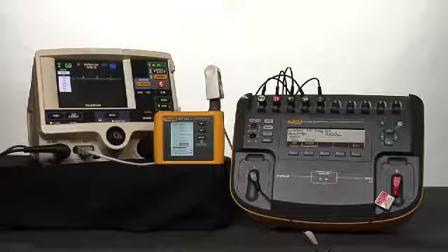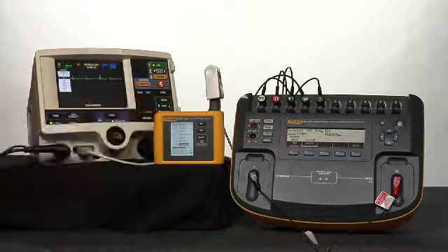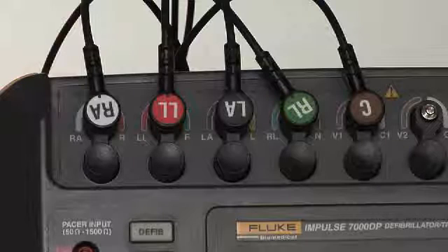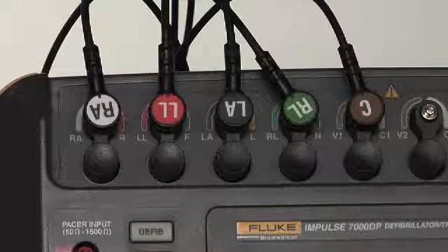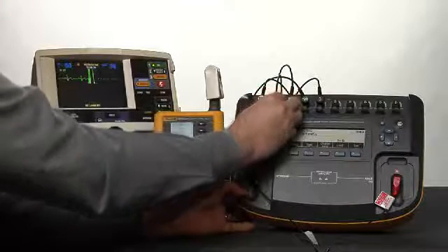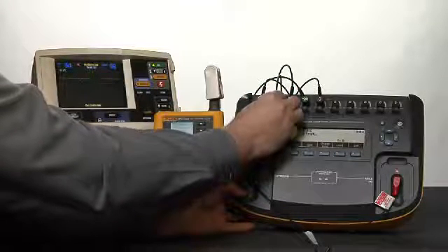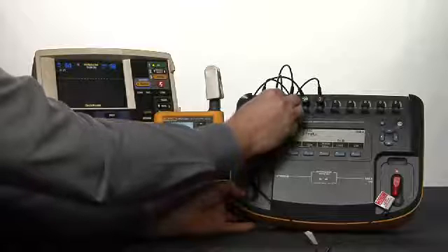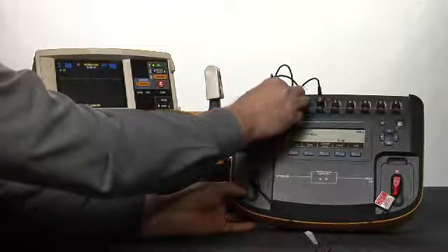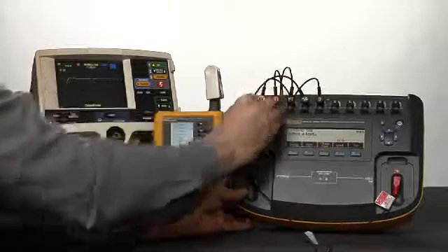Now set it to lead 2. Setting to lead 2. Remove the left leg lead from the patient simulator. Left leg lead removed. Verify that the device under test displays a left lead off screen message. The left leg lead off screen message is displayed. Now reconnect the left leg lead. Reconnected.